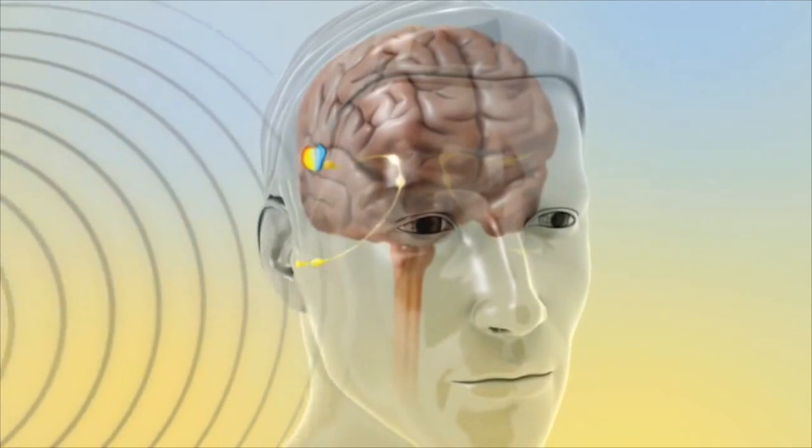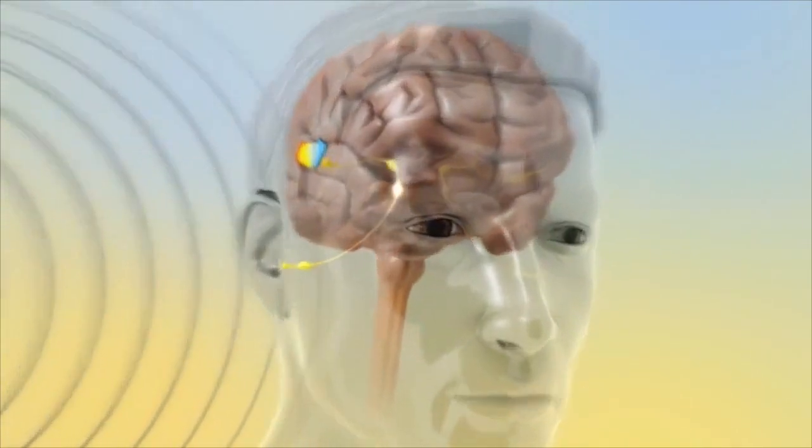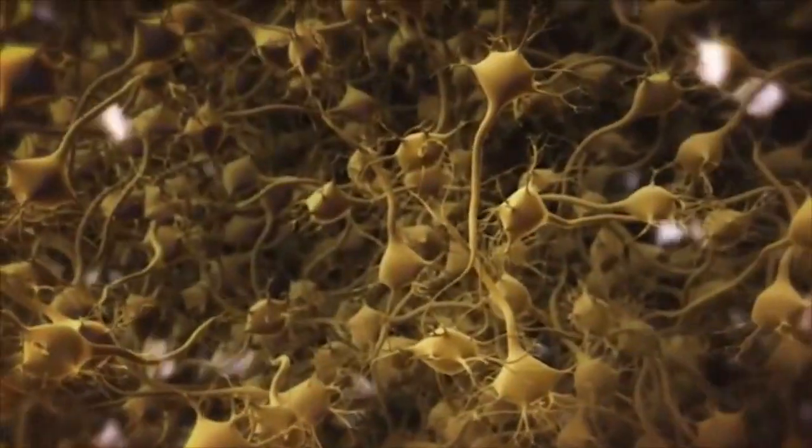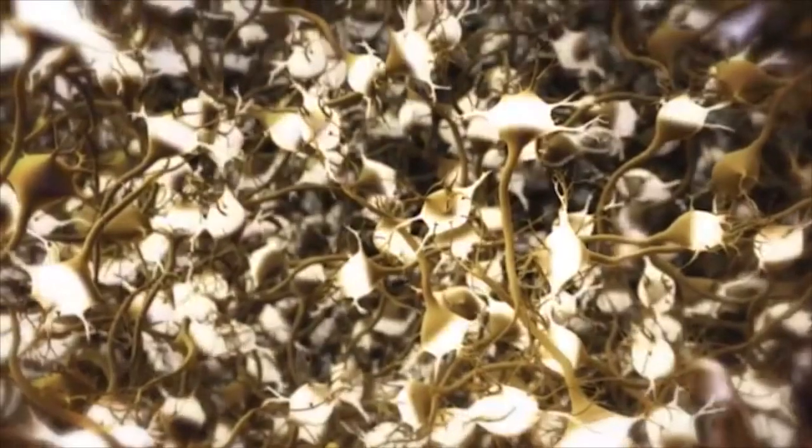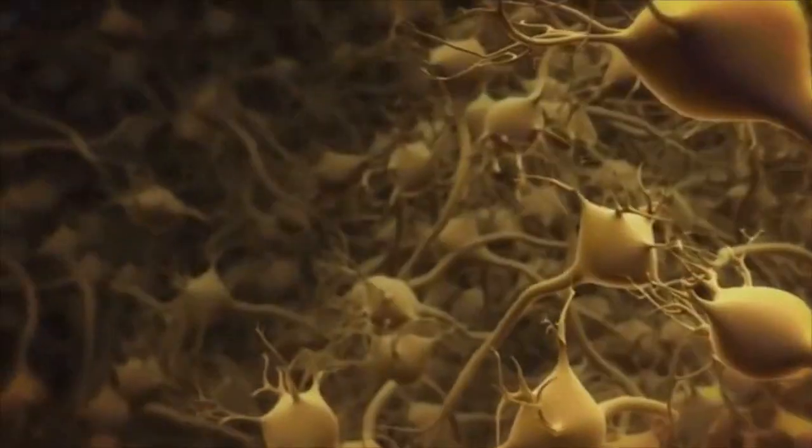Treatment with Acoustic CR Neuromodulation targets the exact cause of the problem. This innovative treatment is designed to reduce hyperactivity in the specific regions of the brain that are responsible for generating the tinnitus sound.